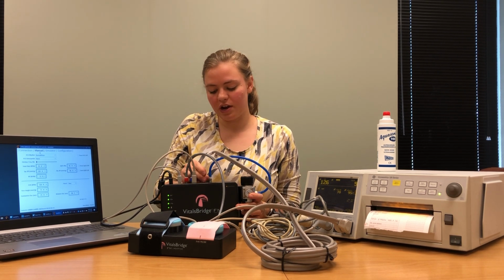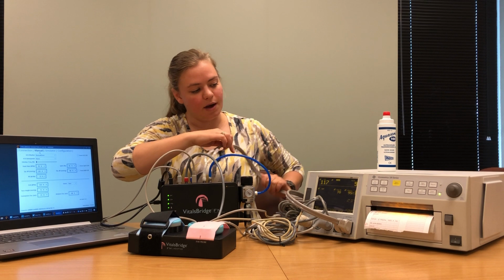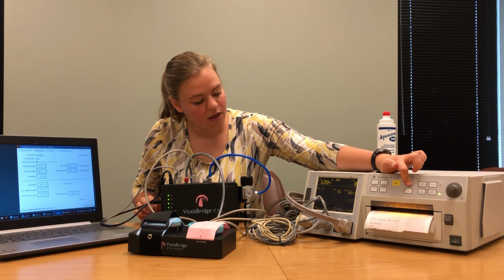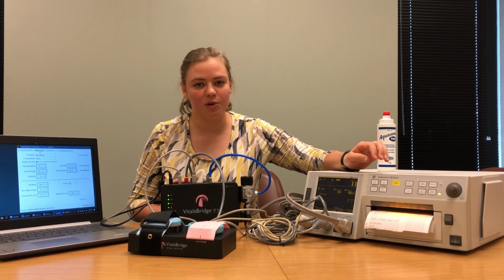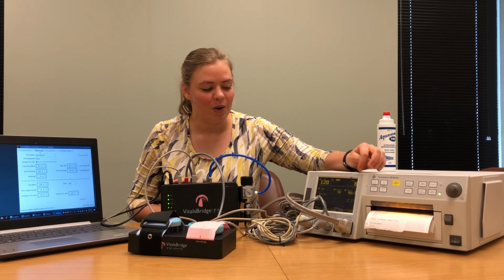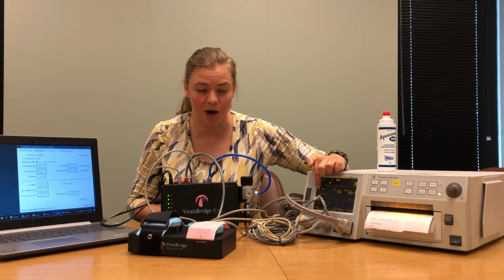Once that's secure and tight, I can take a non-invasive blood pressure reading on my patient monitor. This is done by pushing the button that says BP start/stop. You're going to hear some vibrational noises from your patient monitor and from your VitalsBridge. This is normal and it means that you're getting a good reading. The reading, when it's finished being taken, will appear here on the non-invasive blood pressure section of your patient monitor.